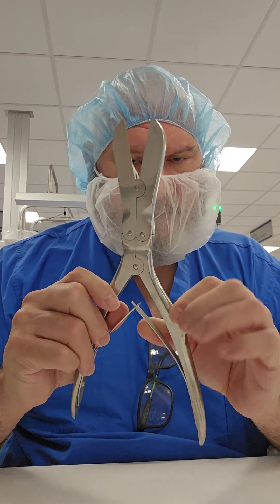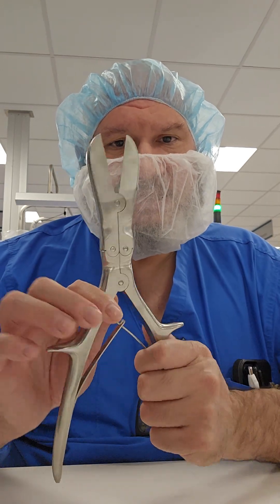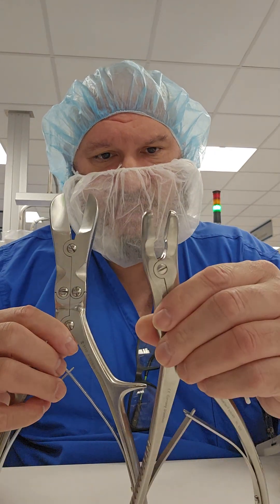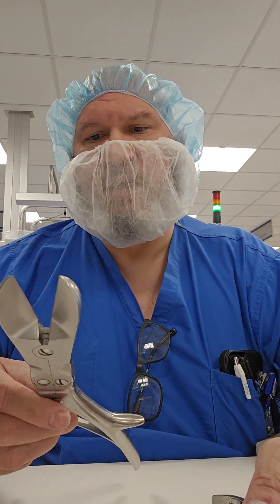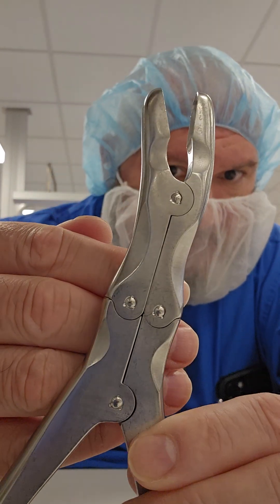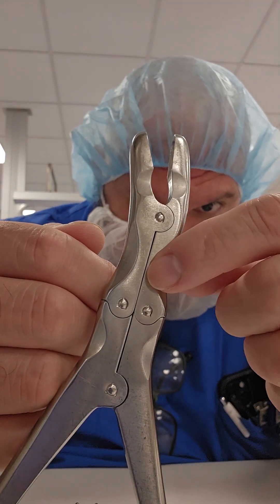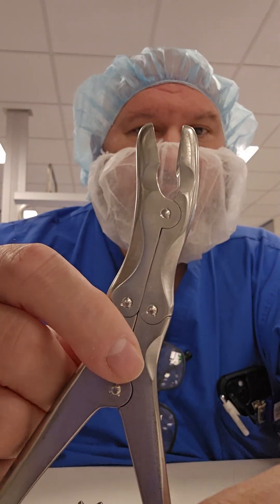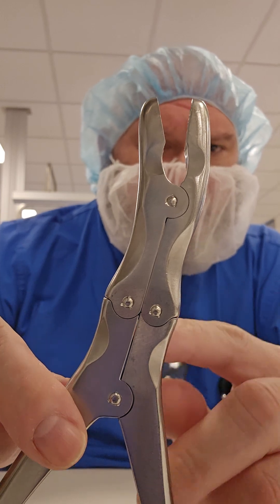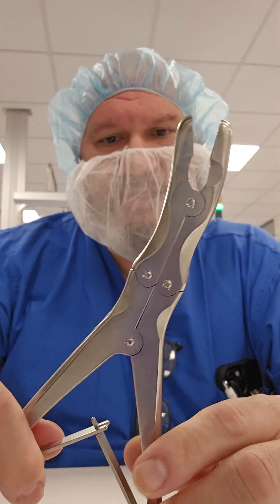Importantly for inspections, these have screws that hold the double action in place. If these were repaired by a manufacturer, you'll notice the screws have been tri-punched — that prevents the screw from backing out. The downside is that when it goes for repair you have to put in a new screw and new punches, so there's a limitation on how many times that can be done.